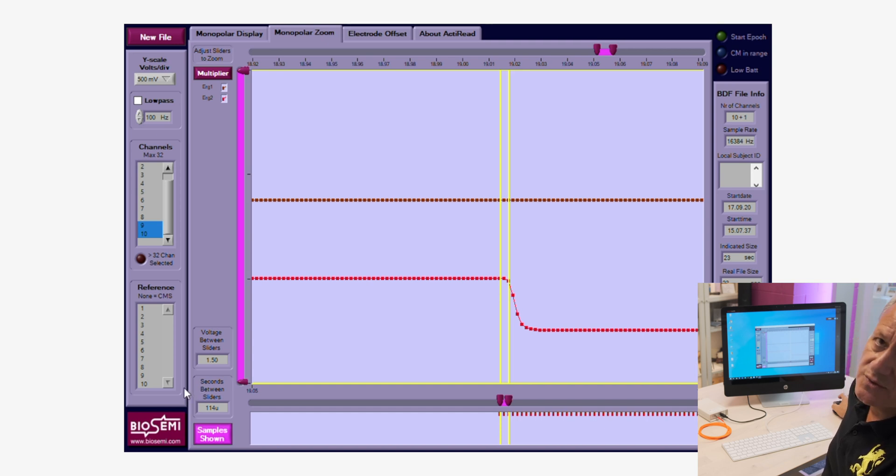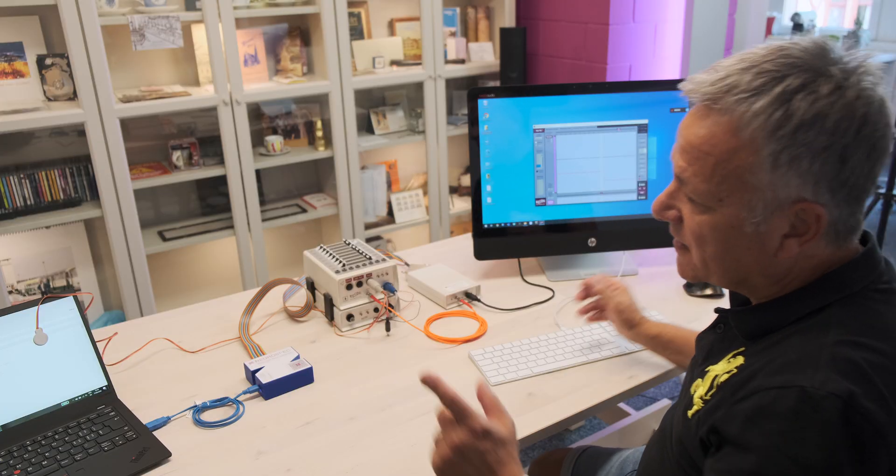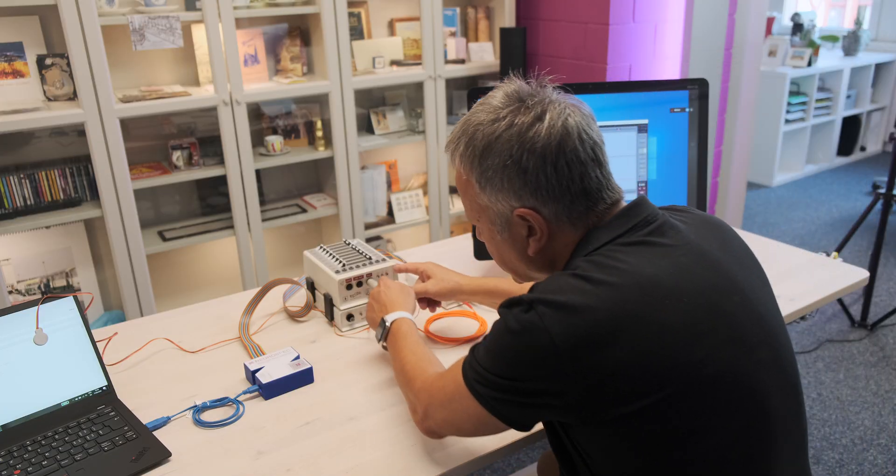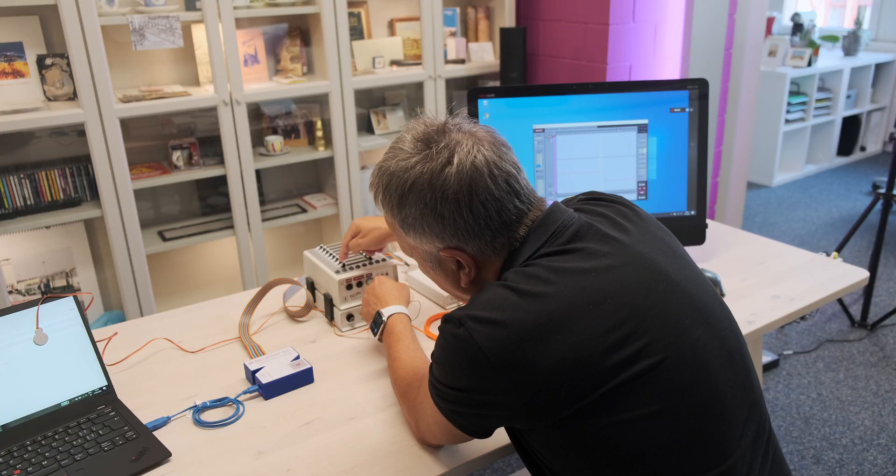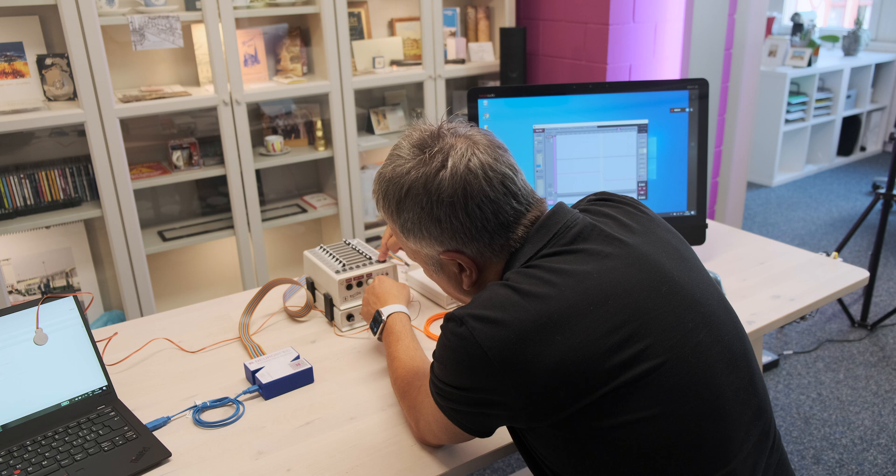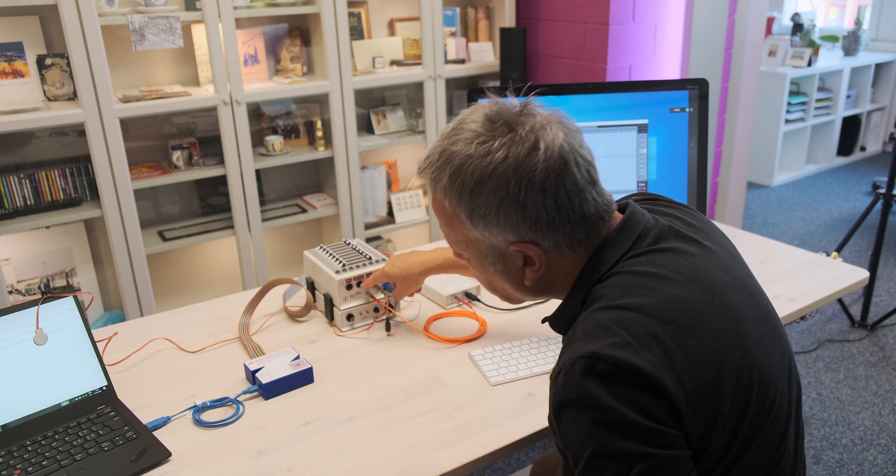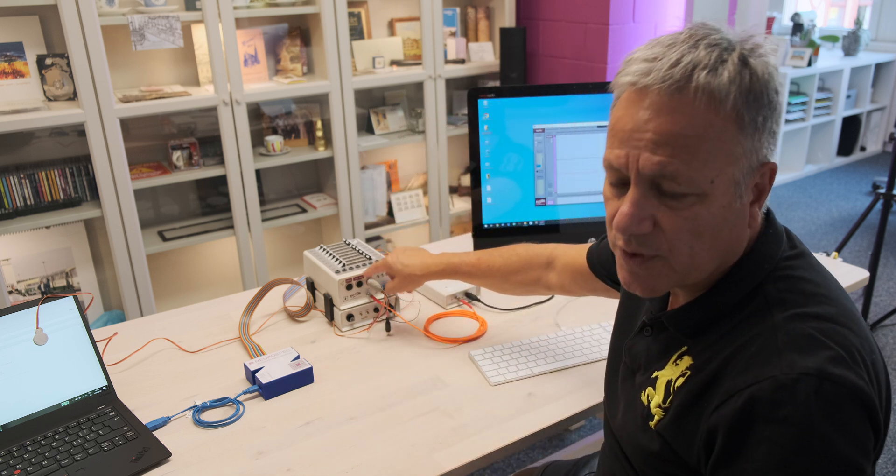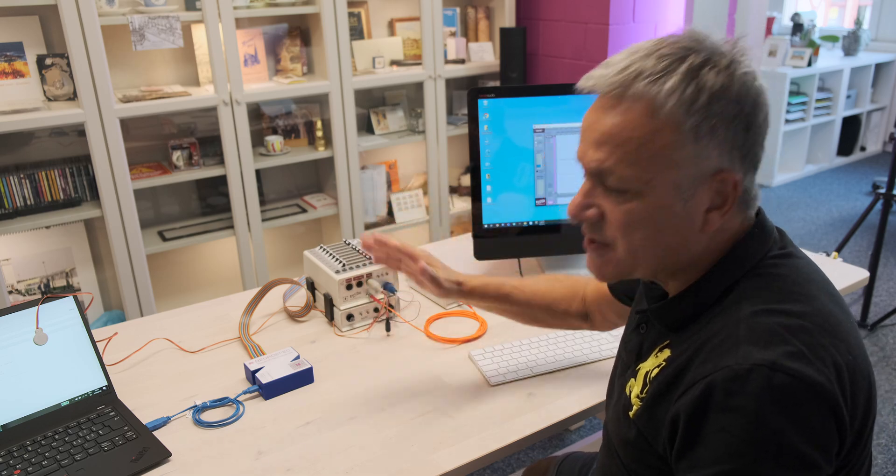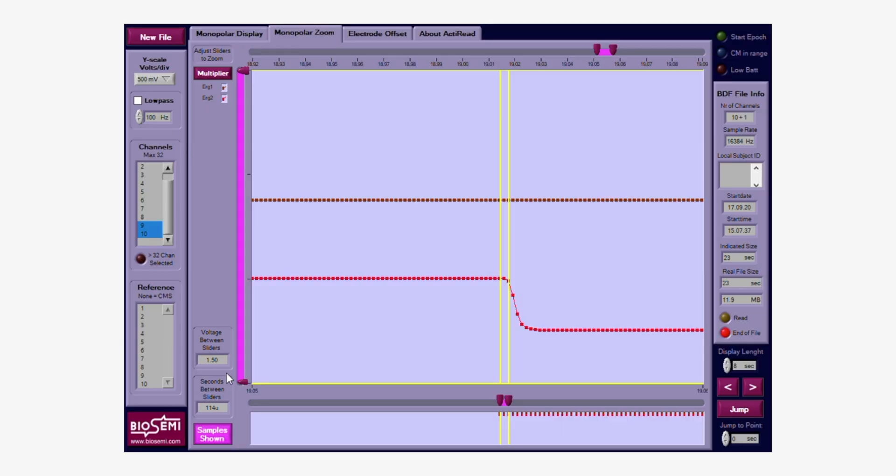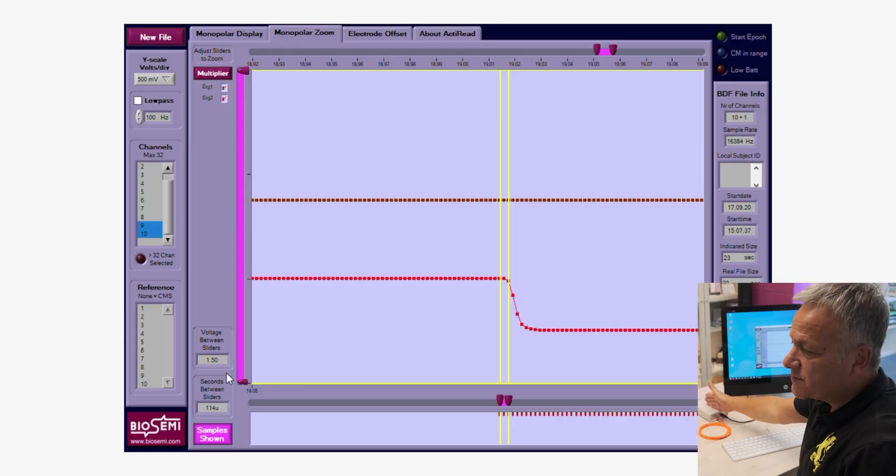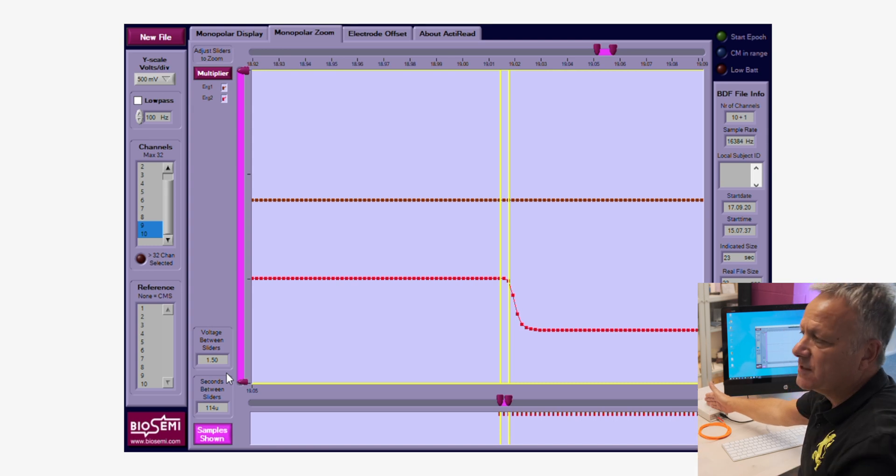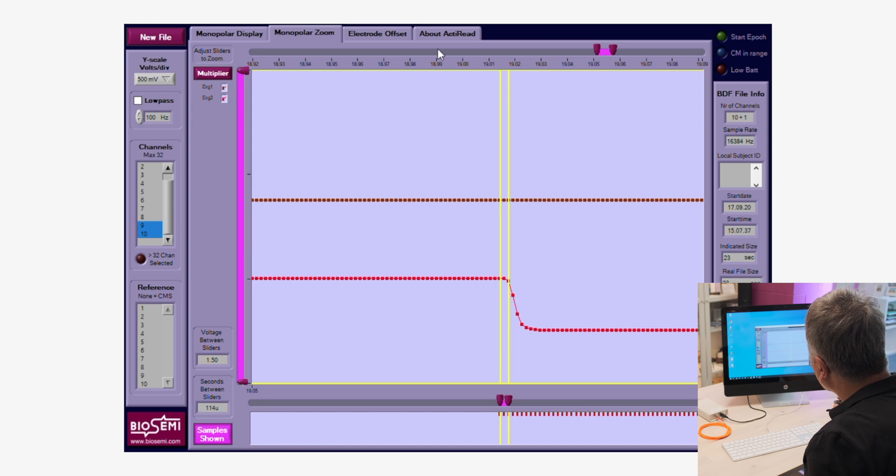That is 0.114 millisecond, which is absolutely negligible. And this has proven that the input through the EEG, through the EXG channels, and through the ERG, GSR plate, whatever you have here on your Active 2, has absolutely no delay to the incoming triggers that is being presented in this particular instance by Presentation. This is really nice.